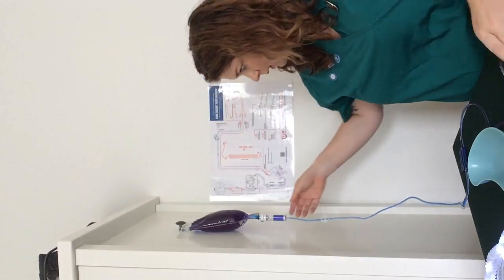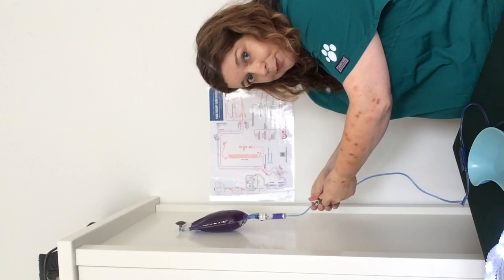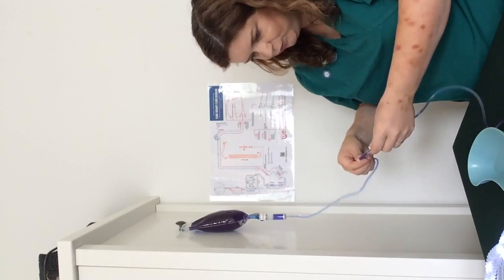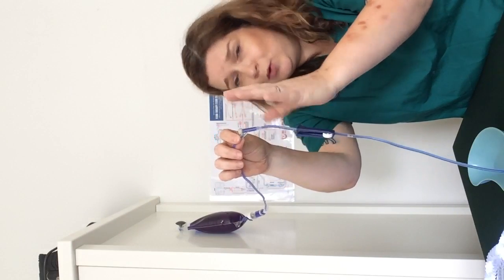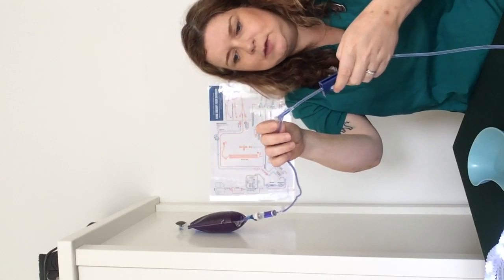I'm going to check the rest of my giving set starting at the top — there's a little niggly hole there I'm definitely going to investigate. Down to the first port: that's fine. Sometimes your port won't be solid with fluid; it'll have a little hole at the top. Sometimes you get air trapped in the elbow — that's absolutely fine, because if it doesn't move when you try to run it through, it's not going to move for the patient.